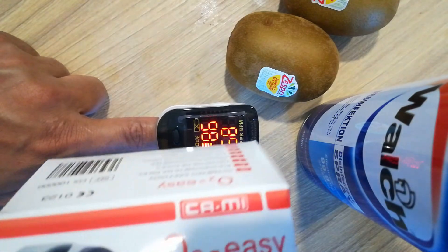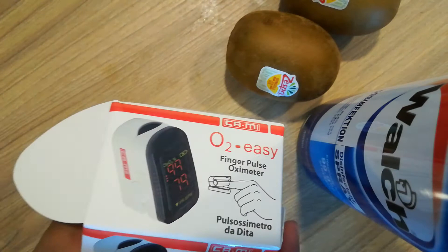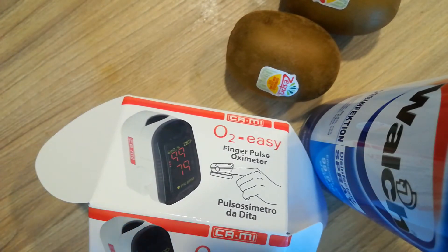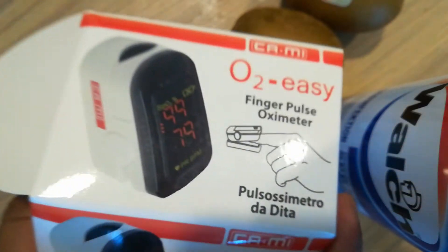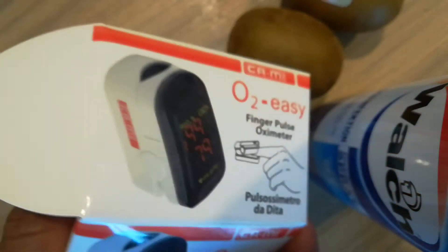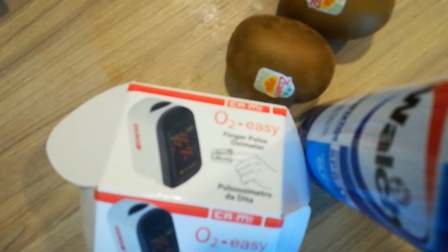There is also an easy menu — you can see the menu as well, and this is very nice. If you want to buy one, you can buy online — no problem. Not only this company; you can buy any company, any product, just make sure it is working well.